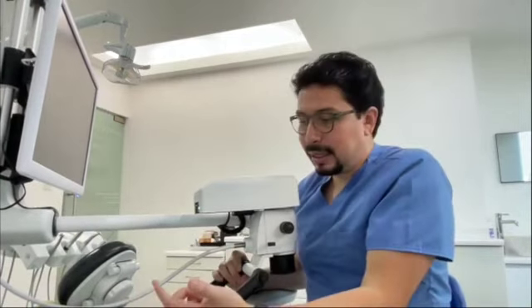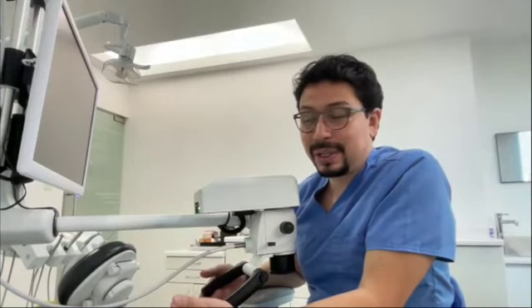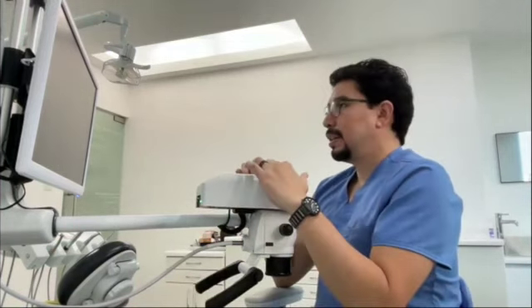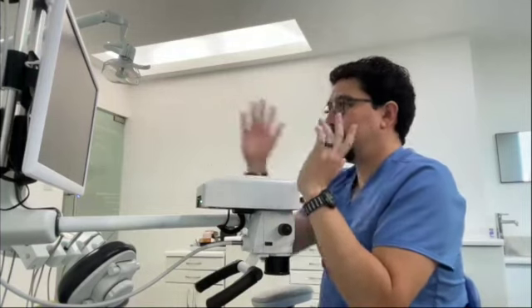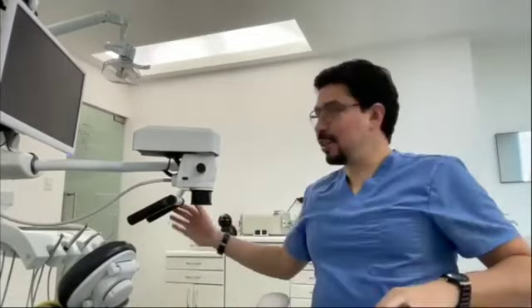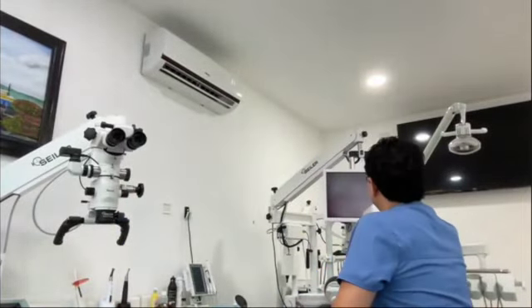What you need to do, guys, I give courses about 3D microscopy. And for my students, it's quite easy. They just need to turn on the microscope, sit in the center of the screen, and that's it. Piece of cake. There are not a lot of tricky steps to perform when adjusting the microscope to the student or to the clinical practitioner.